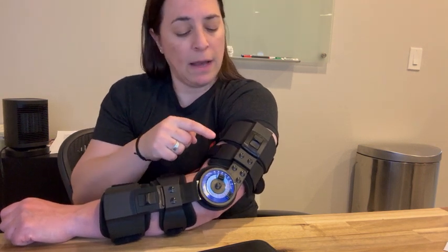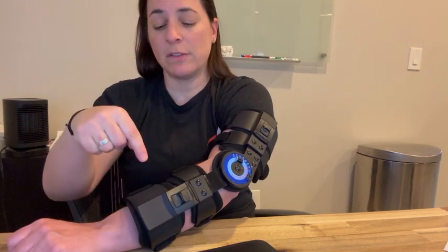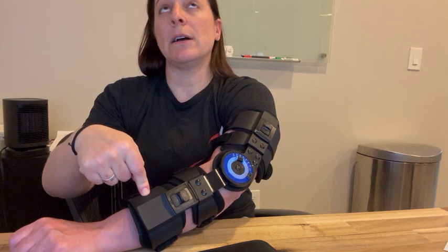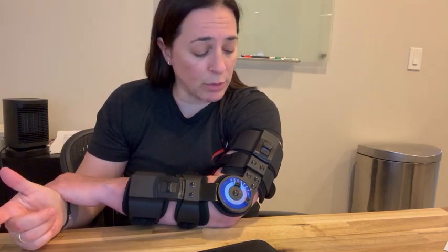This one goes from nine to fifteen inches, five and a half to thirteen inches, seven point nine to twelve point six inches. So I highly recommend this — it's incredibly well made and I hope you enjoy.